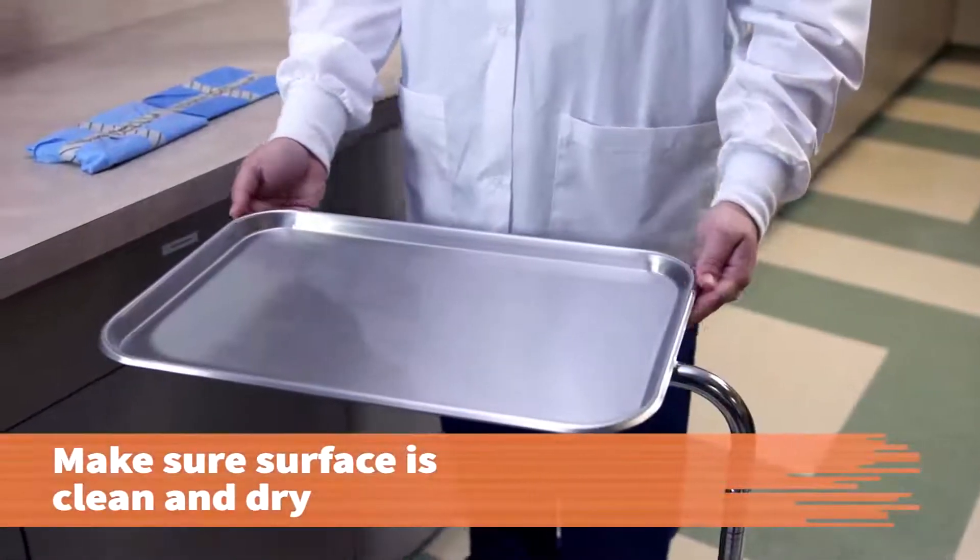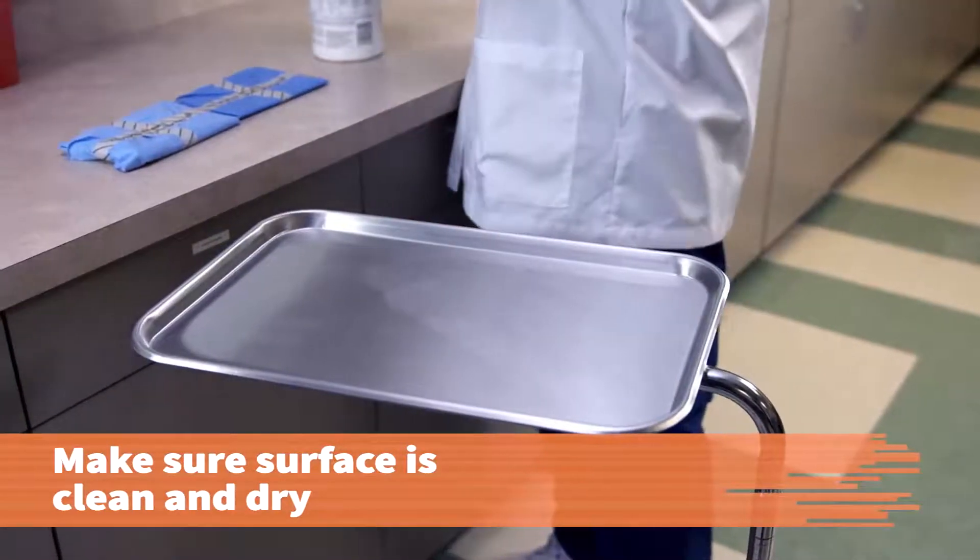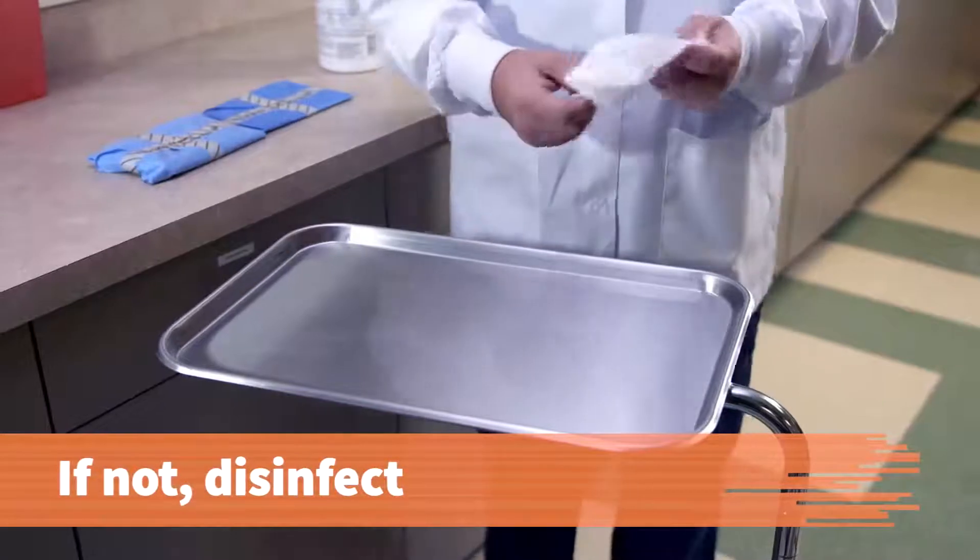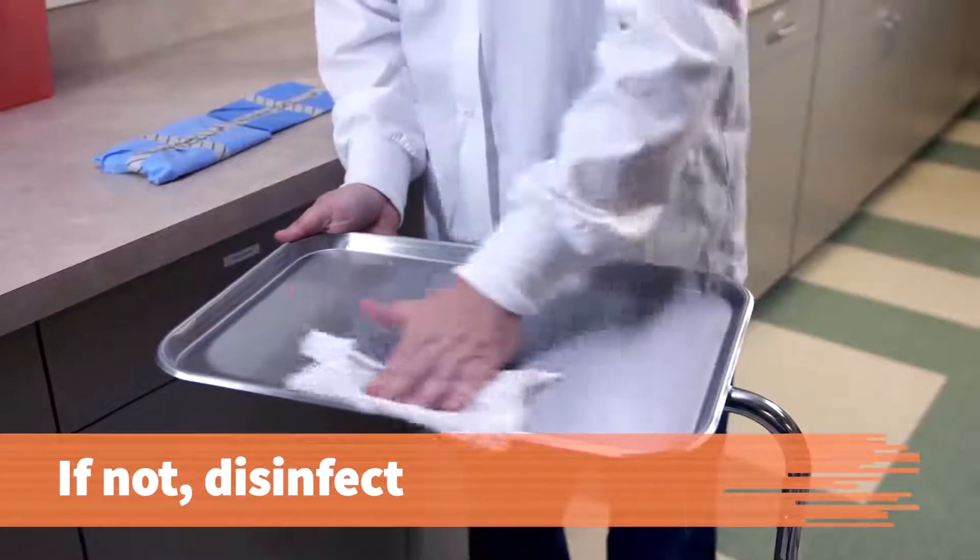Before you begin, check that the Mayo stand or countertop is clean and free of dust or moisture. If it is not, clean the area with disinfectant and allow it to air dry.